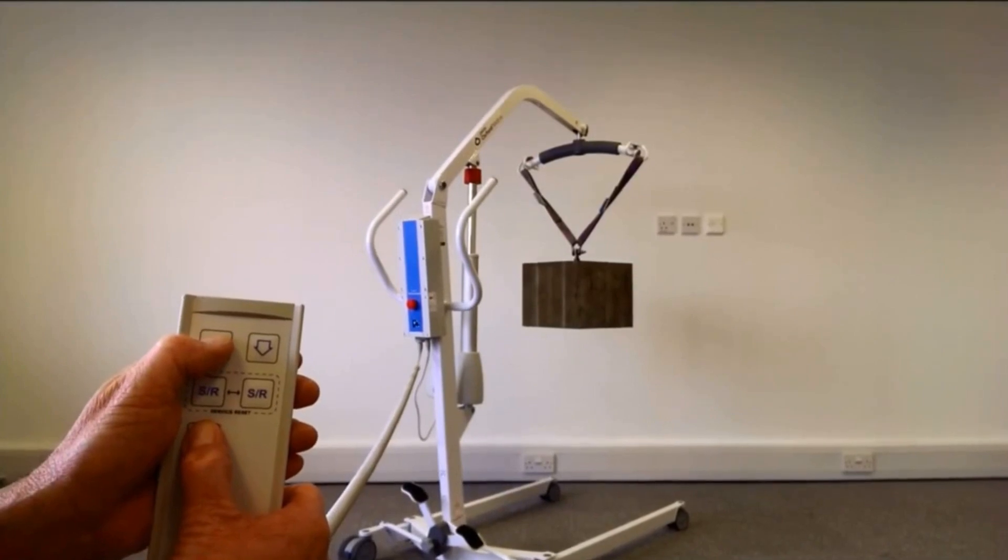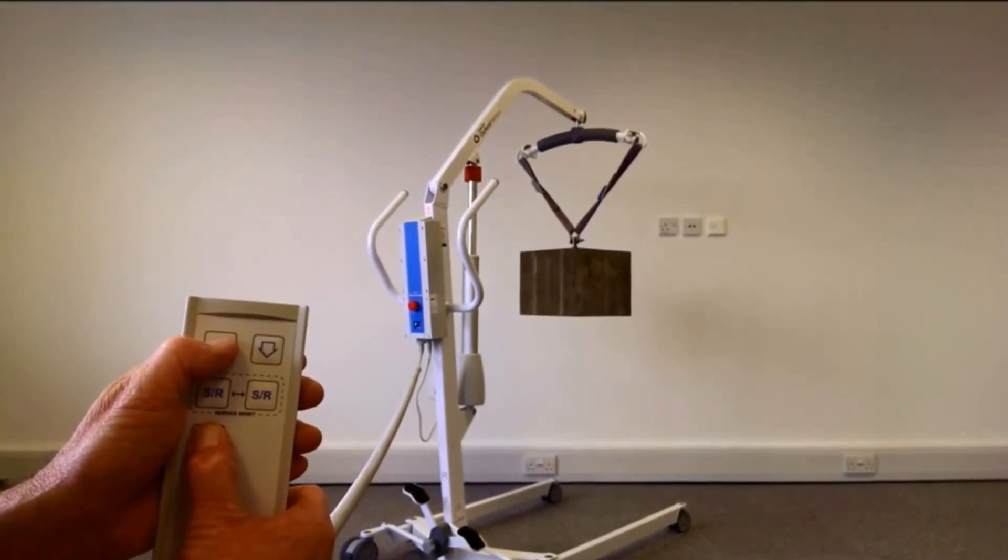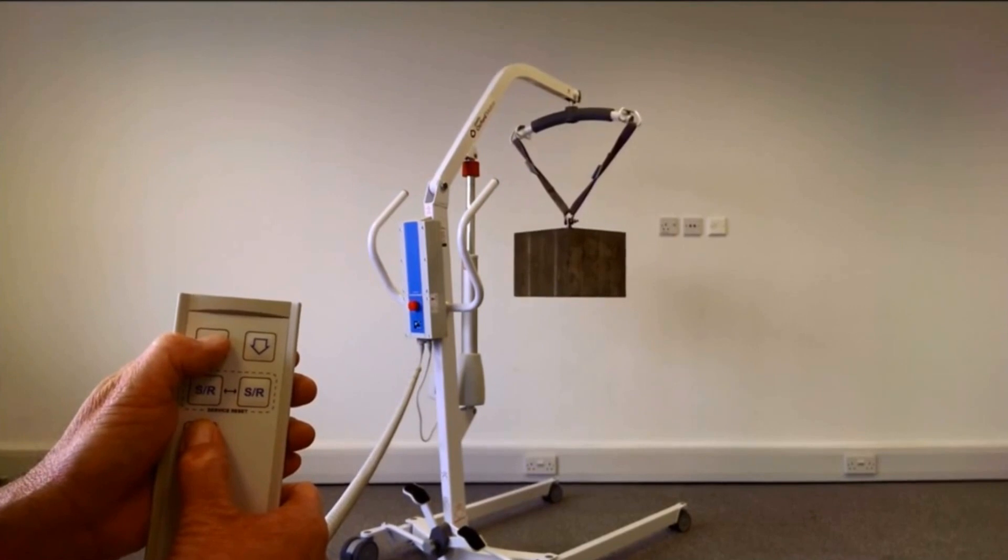When the actuator reaches its uppermost limit, release the raise button whilst keeping the calibrate button firmly depressed.